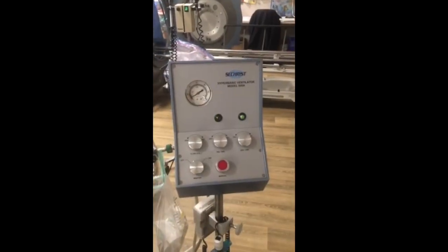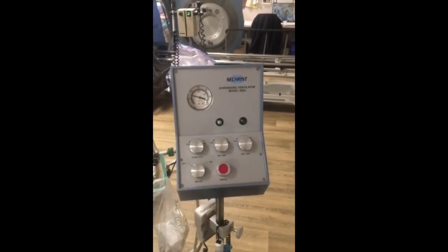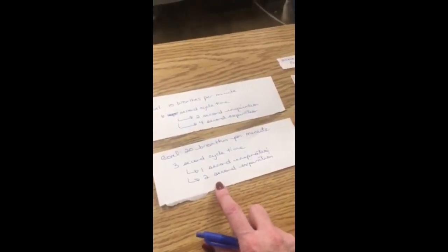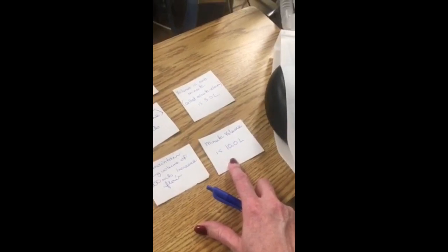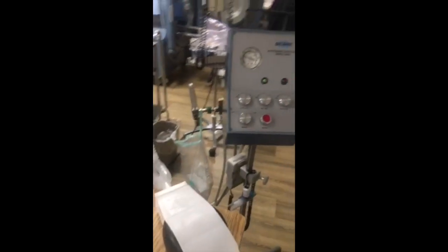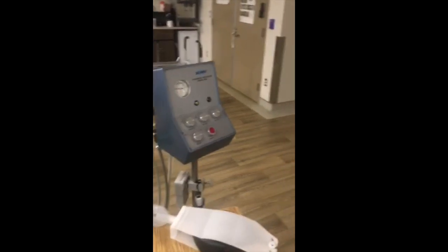Okay, so this is the last section of our video. We've now made changes so that we can demonstrate this patient with 20 breaths a minute to achieve a minute volume of 10 liters. So we'll explain what Dr. Davis did to the ventilator to do that.